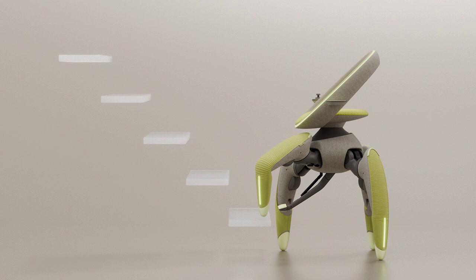The legs are wrapped in a soft, colorful material for protection and to provide a welcoming aesthetic. Key Features: Autonomous Navigation. The legs function independently, bending, lifting, or folding to adapt to various environments. They can even fold neatly beneath the chair for storage and transport.